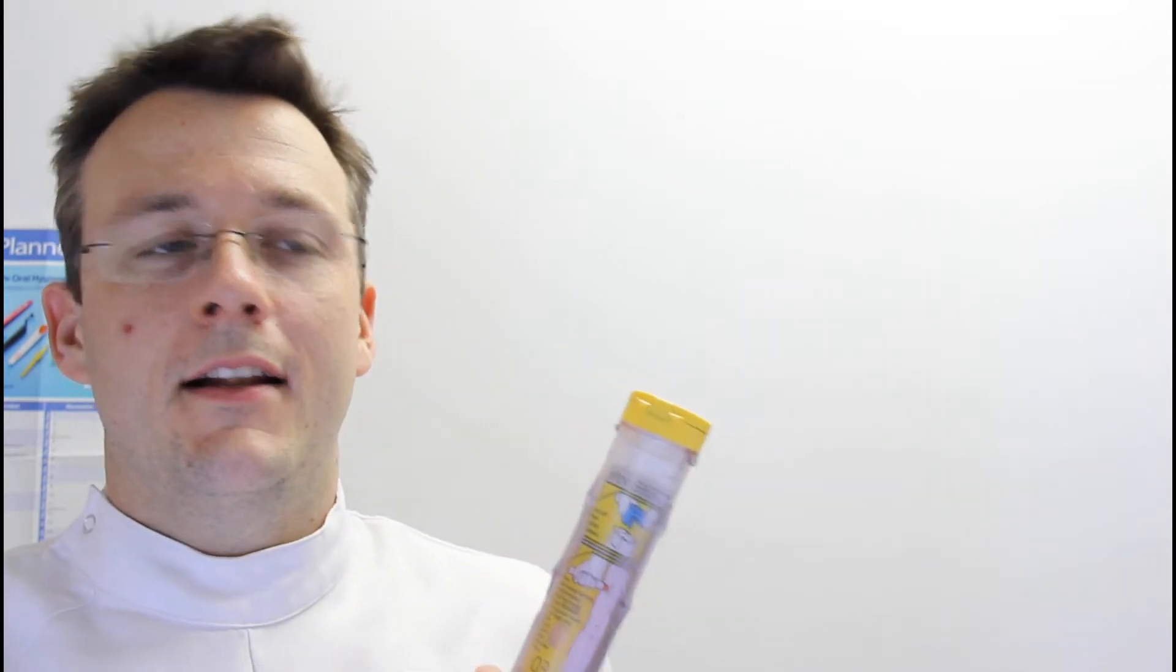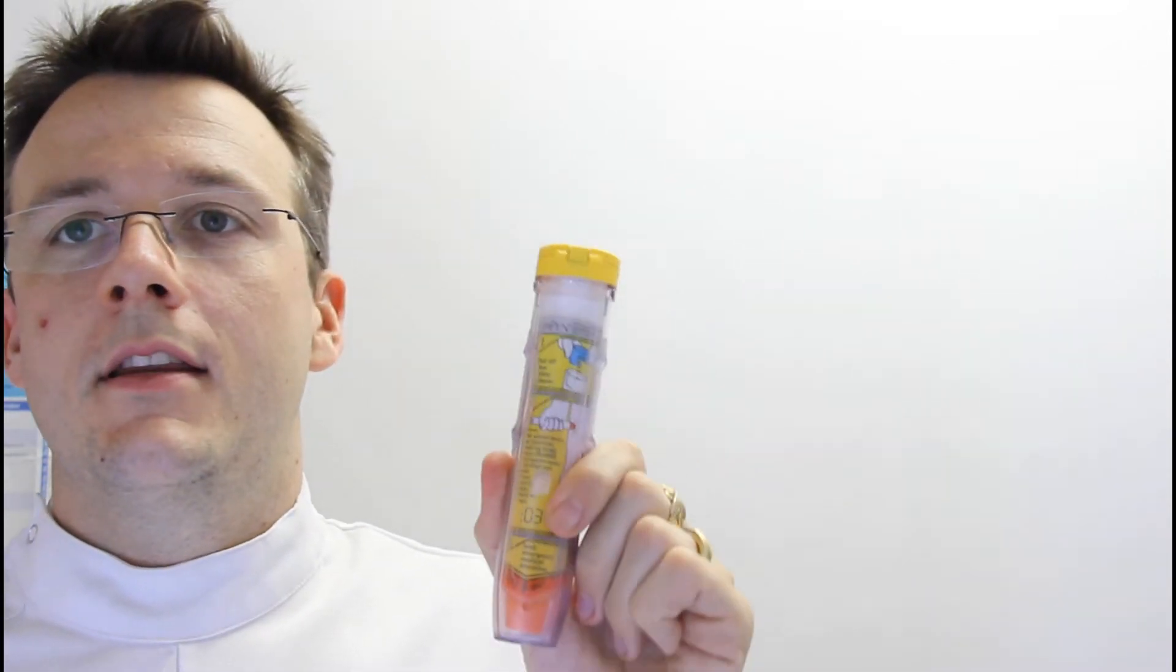Hi boys and girls, it's pharmacist Mark again, and I'm bringing you my quick tips with how to use an EpiPen.